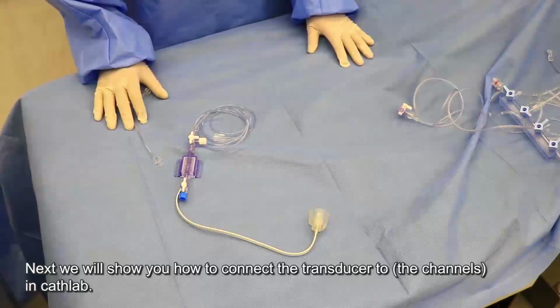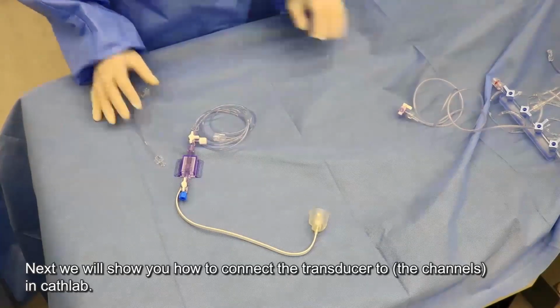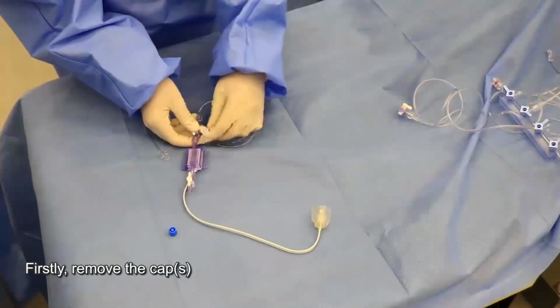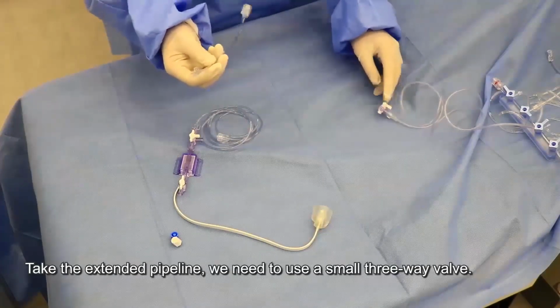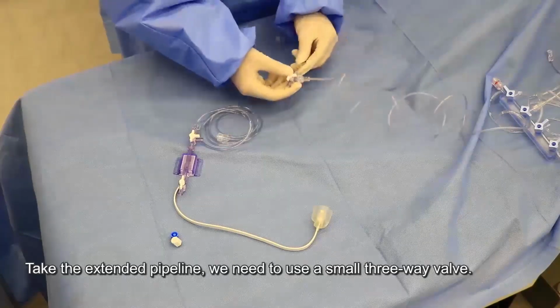Okay, next we will show you how to connect the transducer in Cath Lab. First, remove the cap. Okay, take the extended pipeline. We need to use a small 3-way valve.